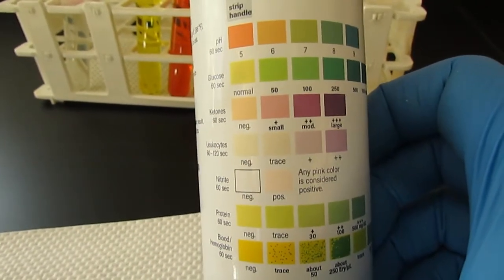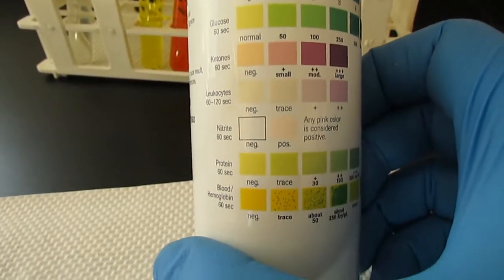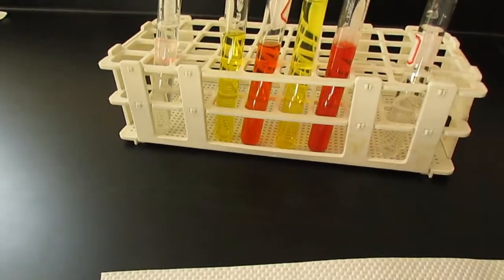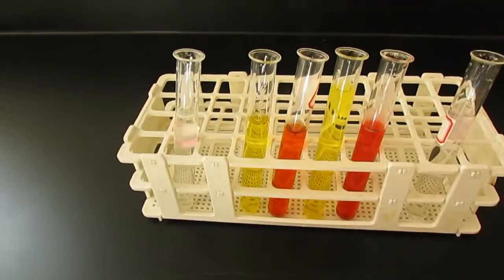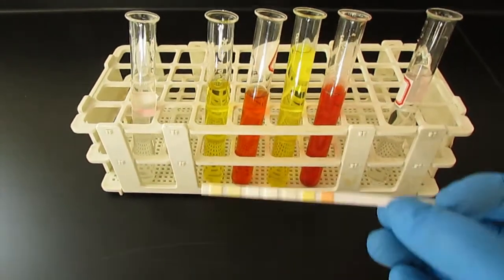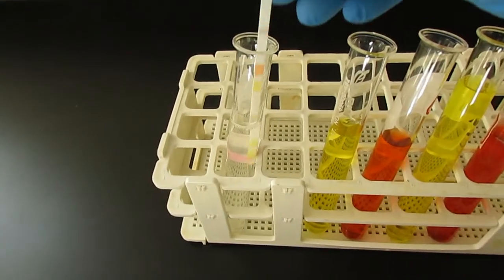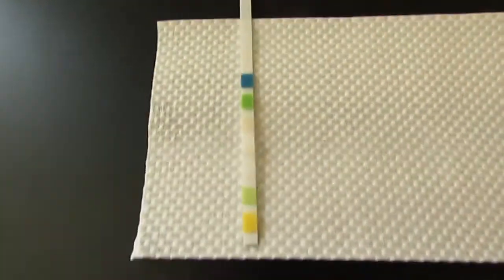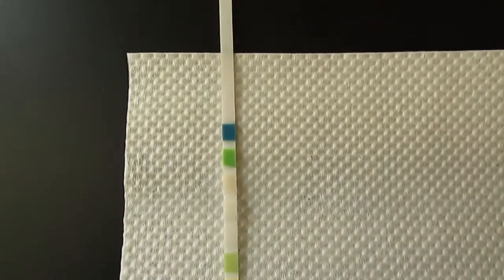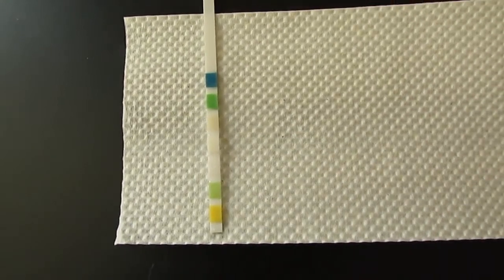I am going to show you the dipping process, which is probably pretty straightforward, especially if you have something like a fish tank or are testing a swimming pool. Then we're going to put the strip flat onto a paper towel and wait the allotted minute, and then I'm going to show you the results. Okay, so first and foremost, here is a testing strip. Very simply, we dip the strip into the simulated urine and again lay it flat, and we can see that over time these little squares are going to change color. Sometimes they'll get darker, sometimes they'll become a different color.